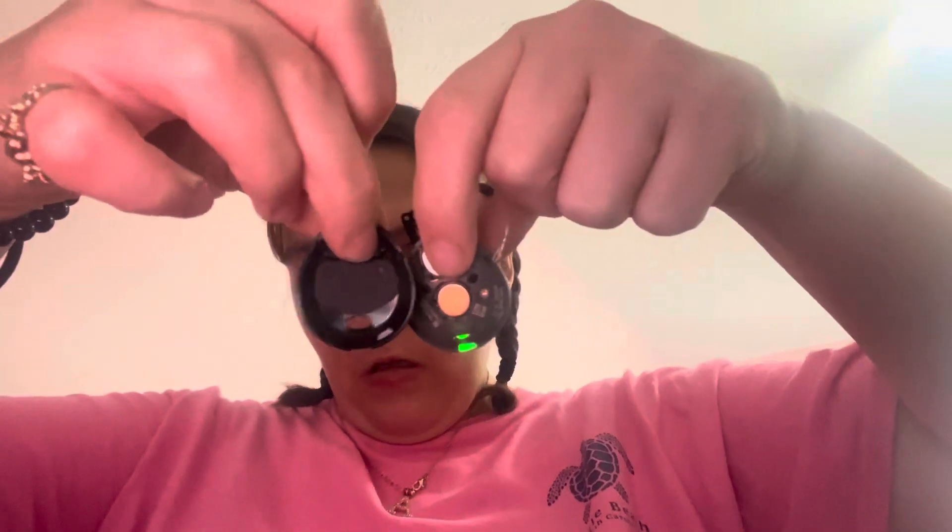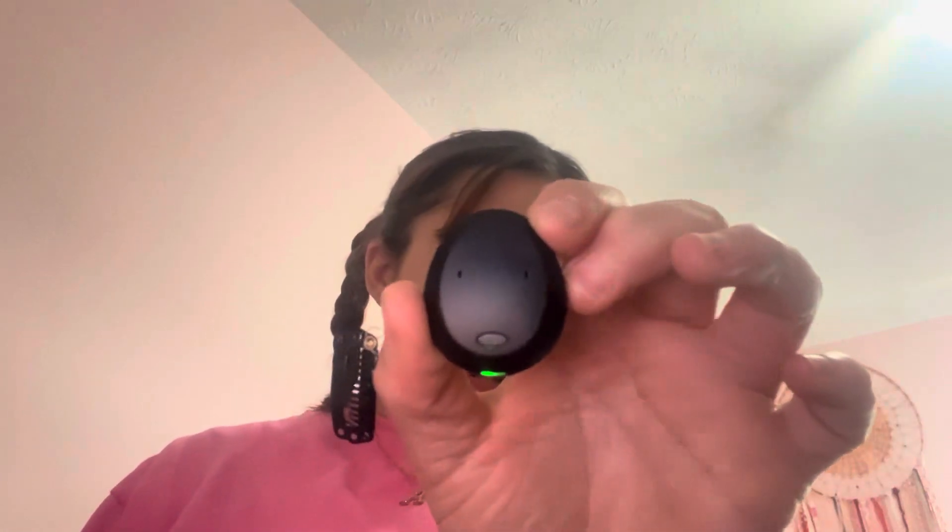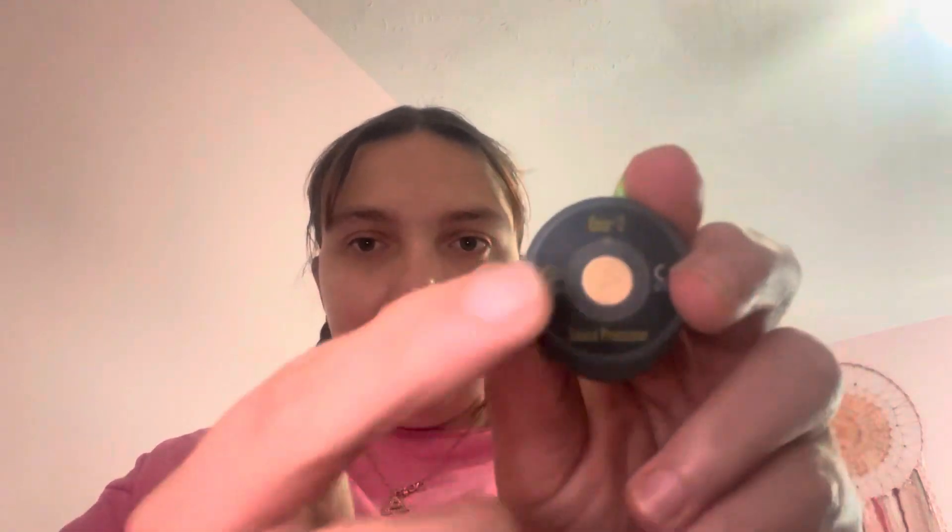You're basically gonna match it up, and you can tell on the inside which side goes on, then you cover it like so. I might have to take the battery out — oh no, let me do it — yay, and kaboom! I have a new battery in along with a new cover.